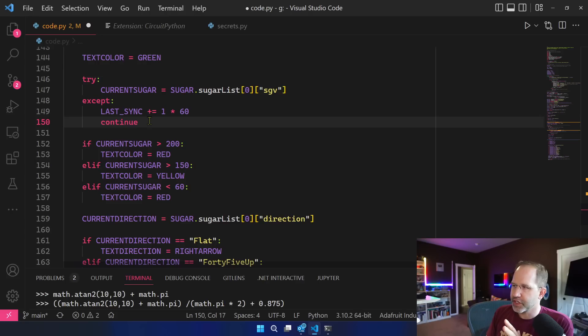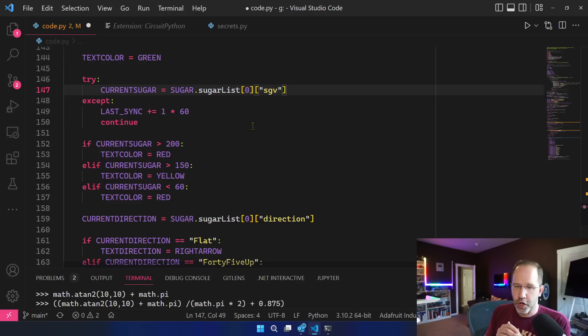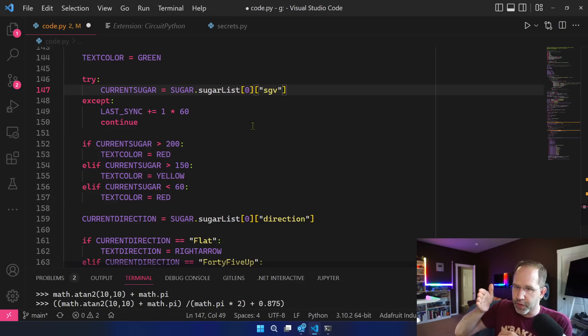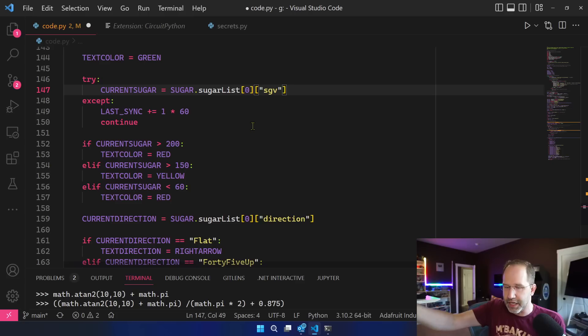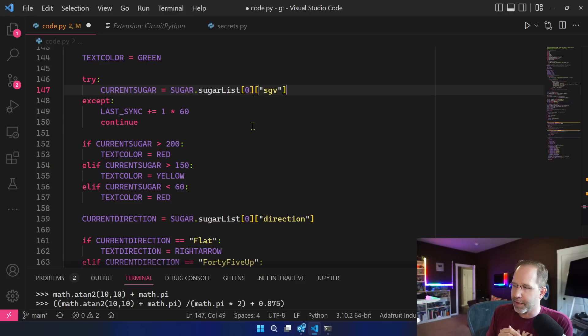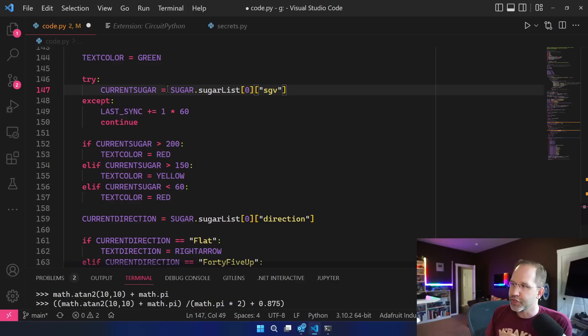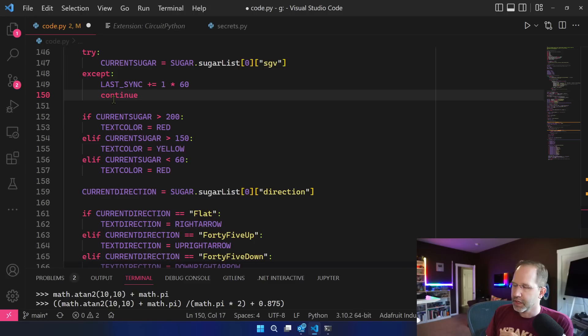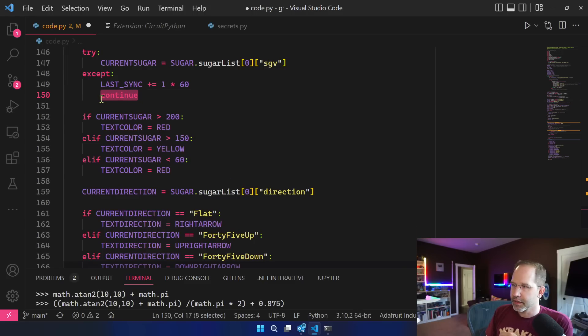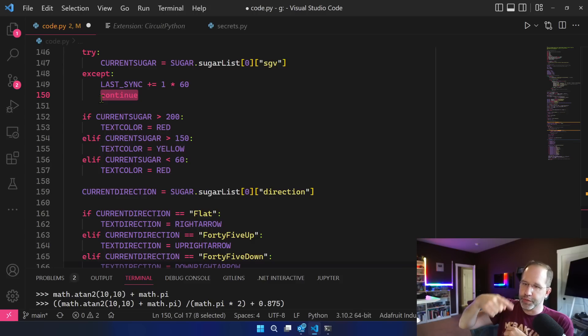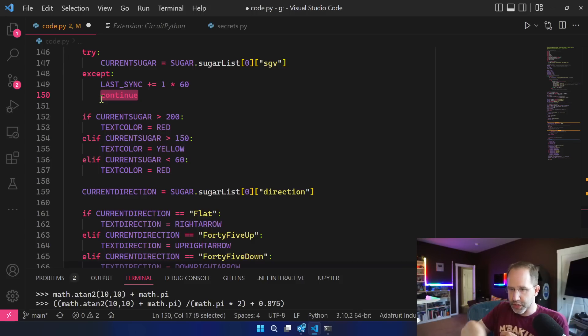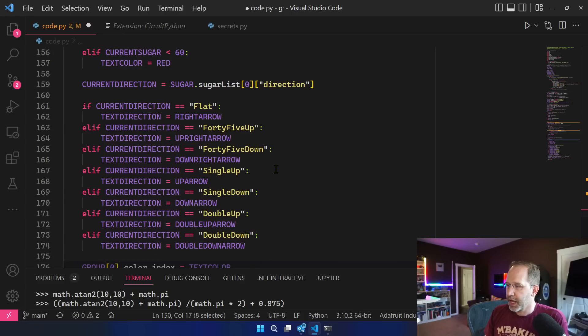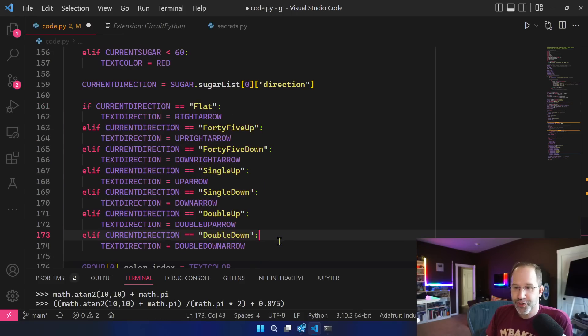I also have a little bit of cheap, cheesy exception handling where if this breaks I'm doing what's called breaking the law of Demeter. I'm digging into sugar.sugarlist assuming that it works. I'm going sugarlist at zero assuming it works and then I'm digging even deeper. If anything doesn't look right or anything is malformed I'm going to cause an exception. I'm assuming it didn't work because something happened on the server and then I wait a minute and I come back later. I noticed that continue here, it's kind of like break. So in Python you're running through a while loop and you say continue, it's going to start at the beginning of the while loop and continue as opposed to break out of the thing.